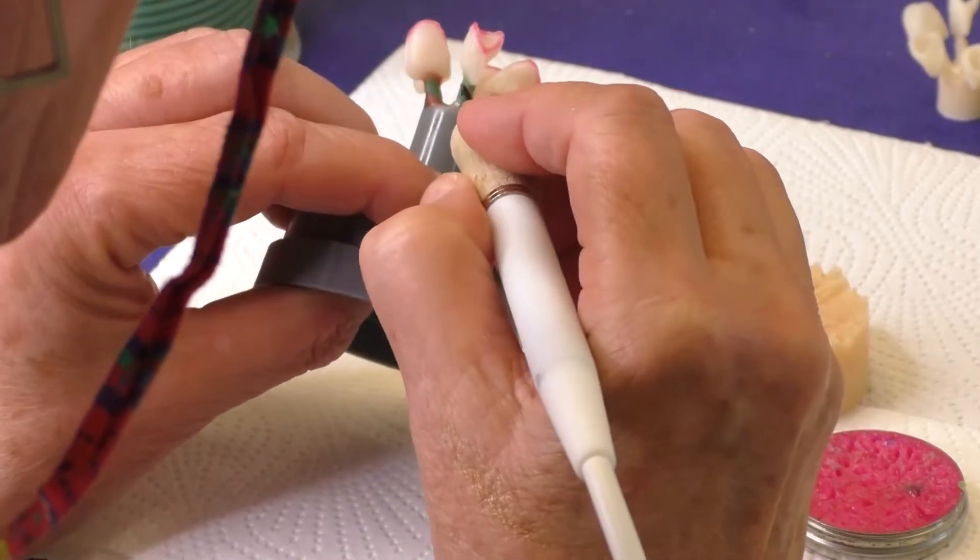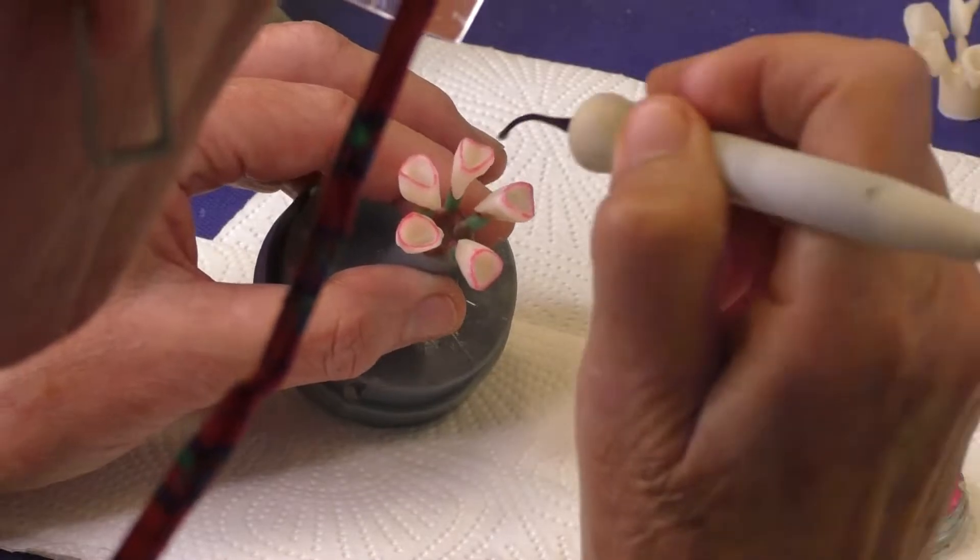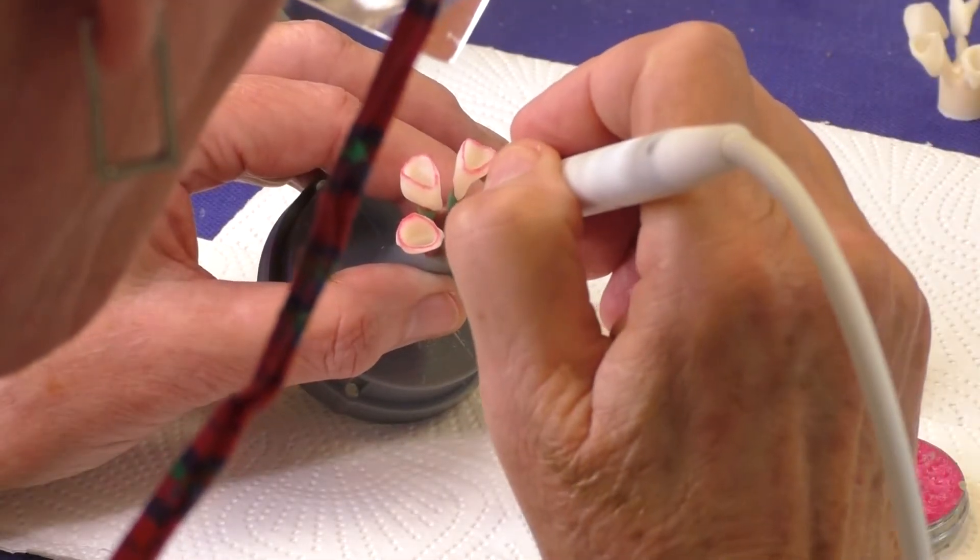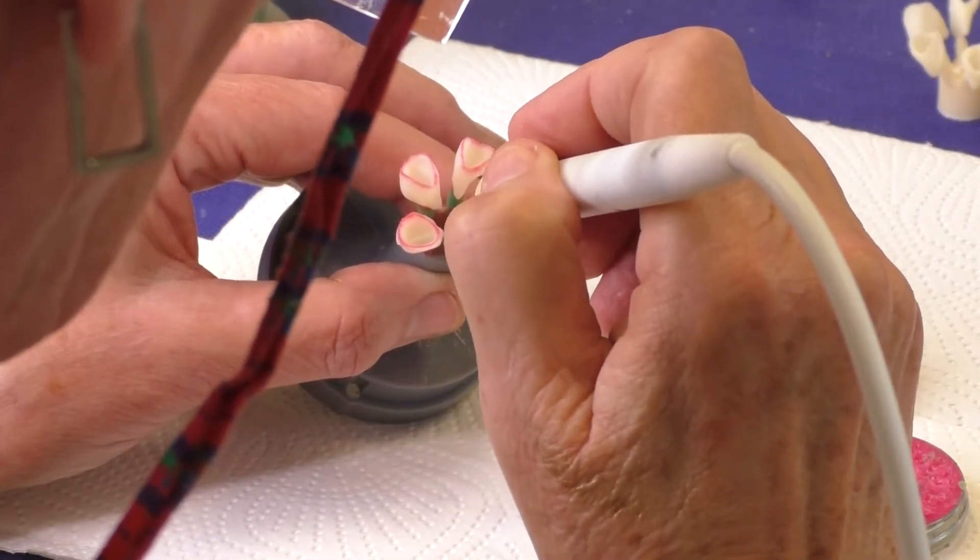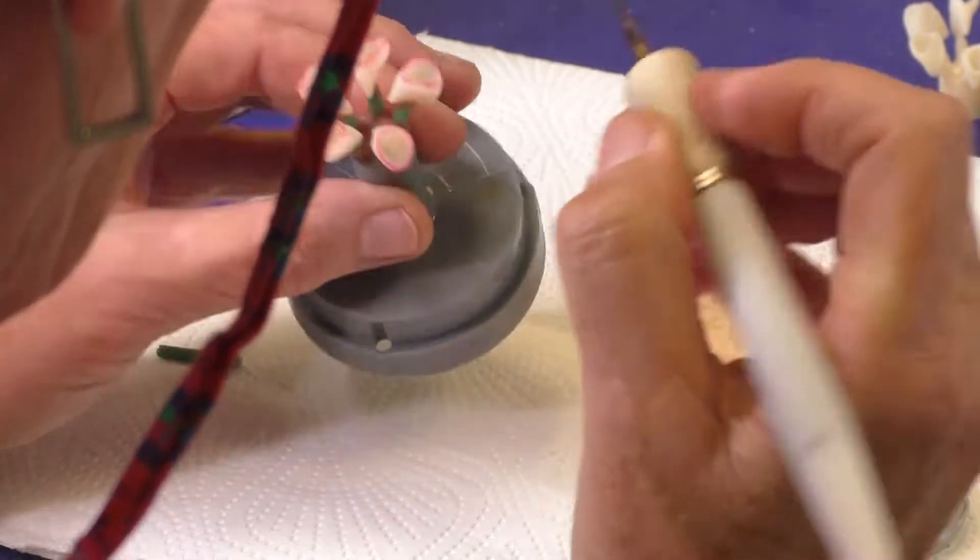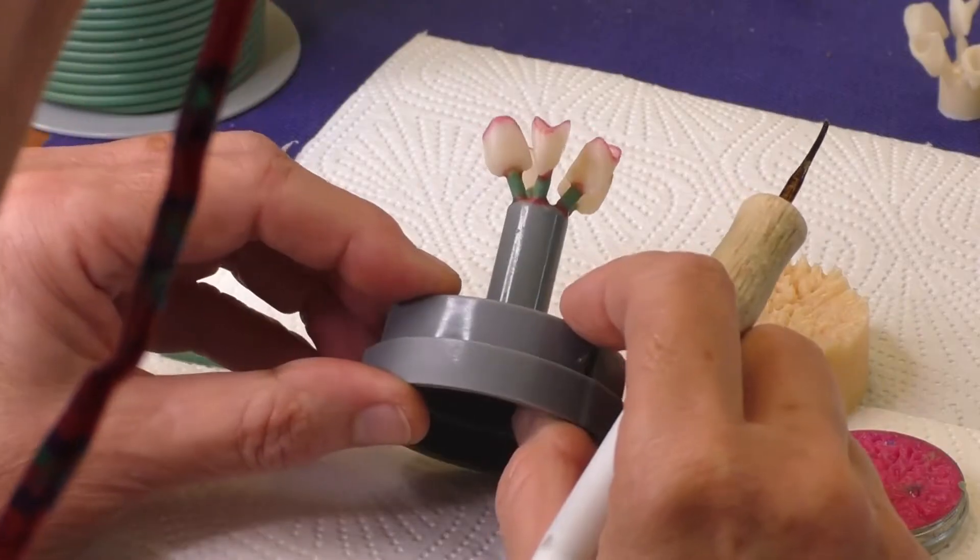If you press from thin to thick, the ceramic will be too viscous, and the crystals will become wedged together at the thin area. This can lead to whitish coloring like a ring around the attachment area of the sprue.